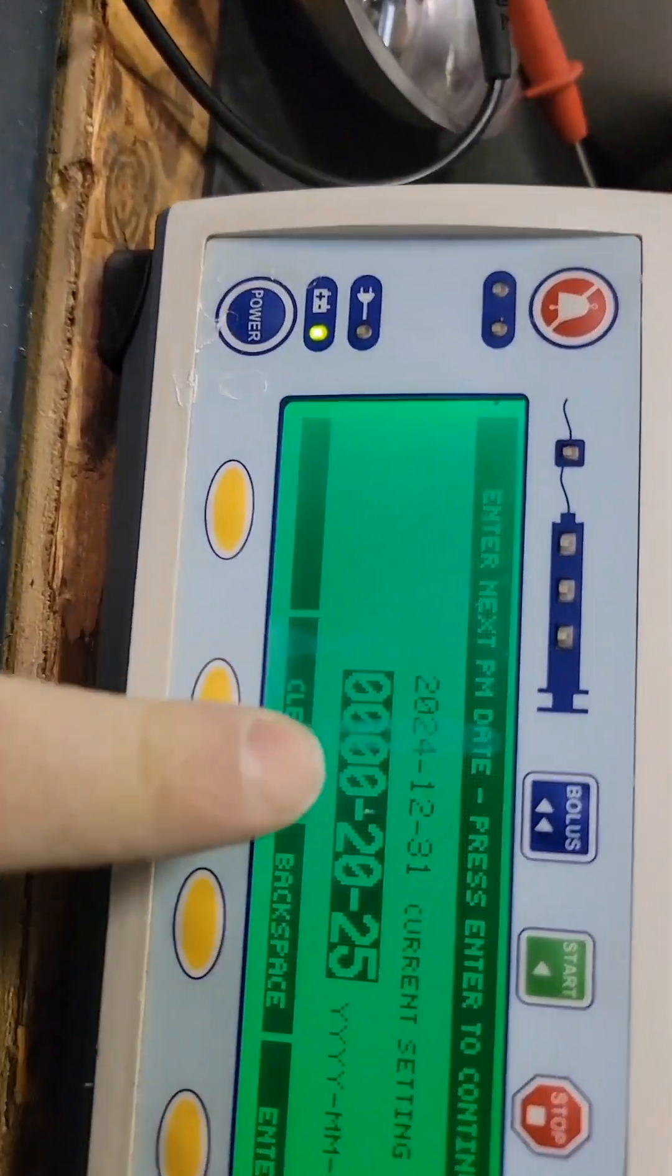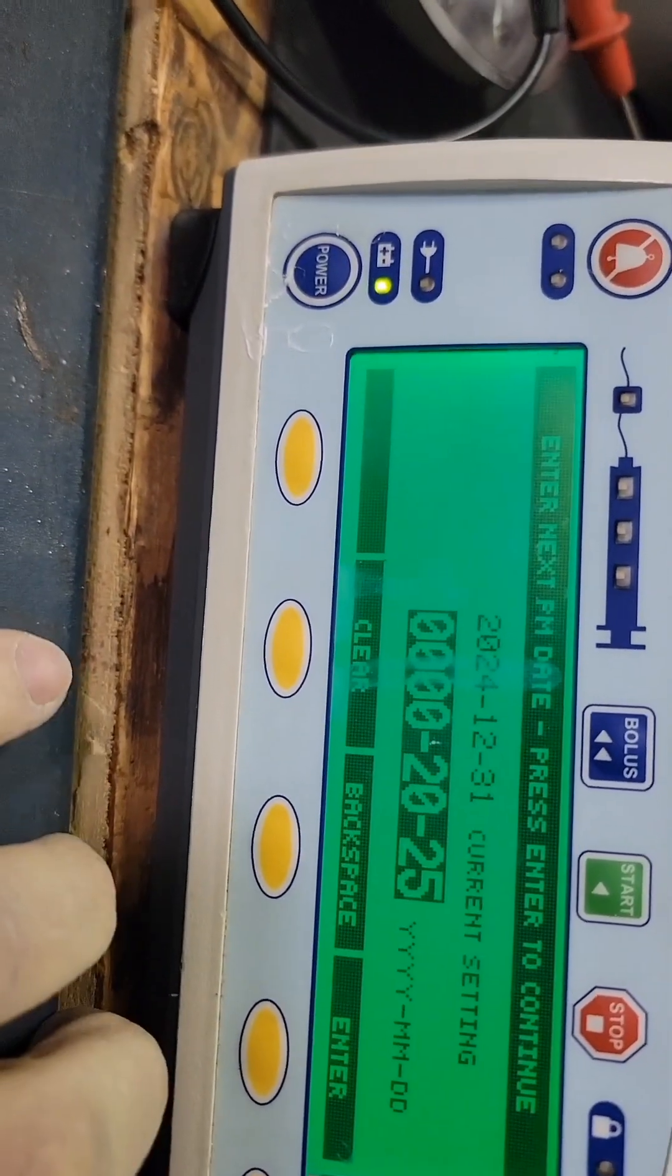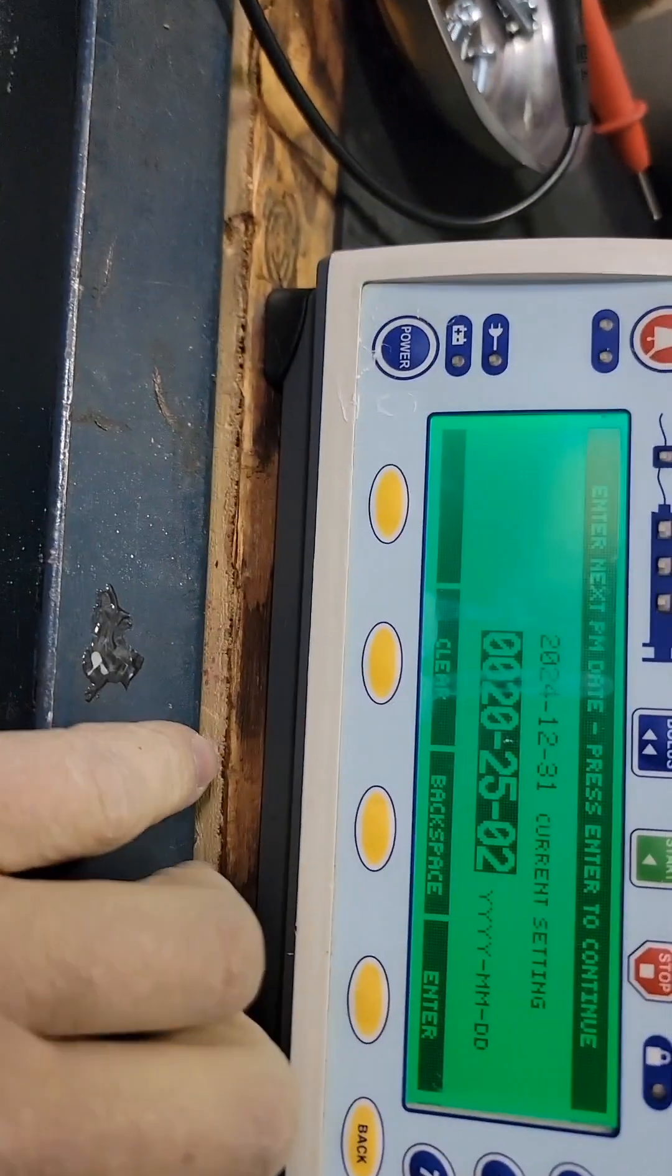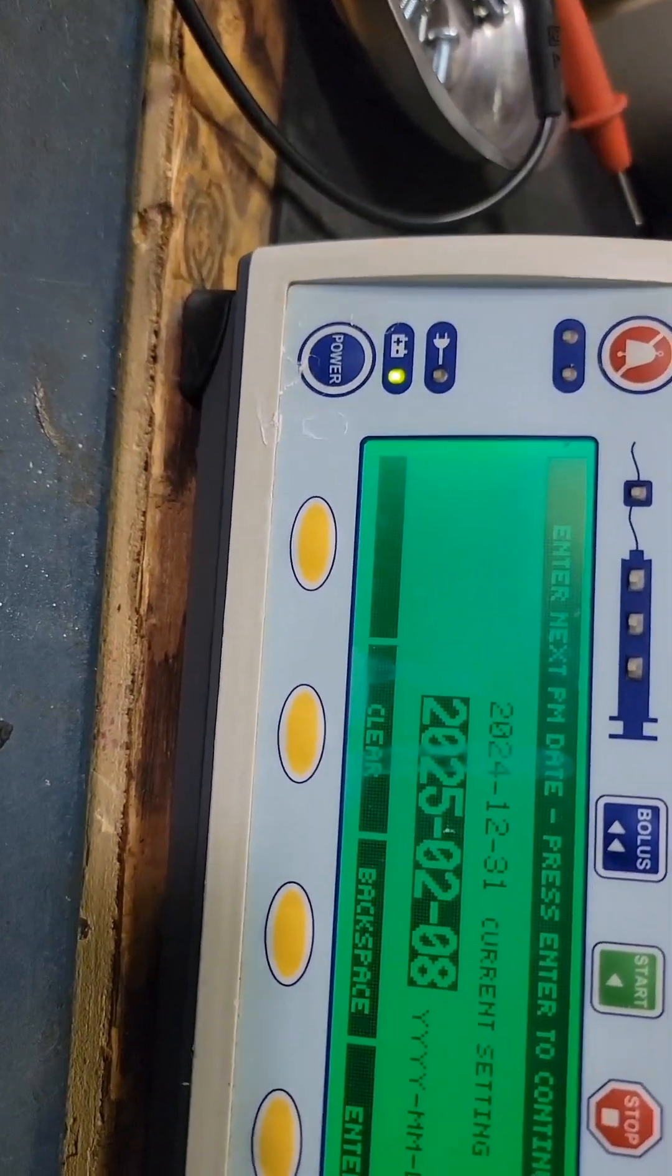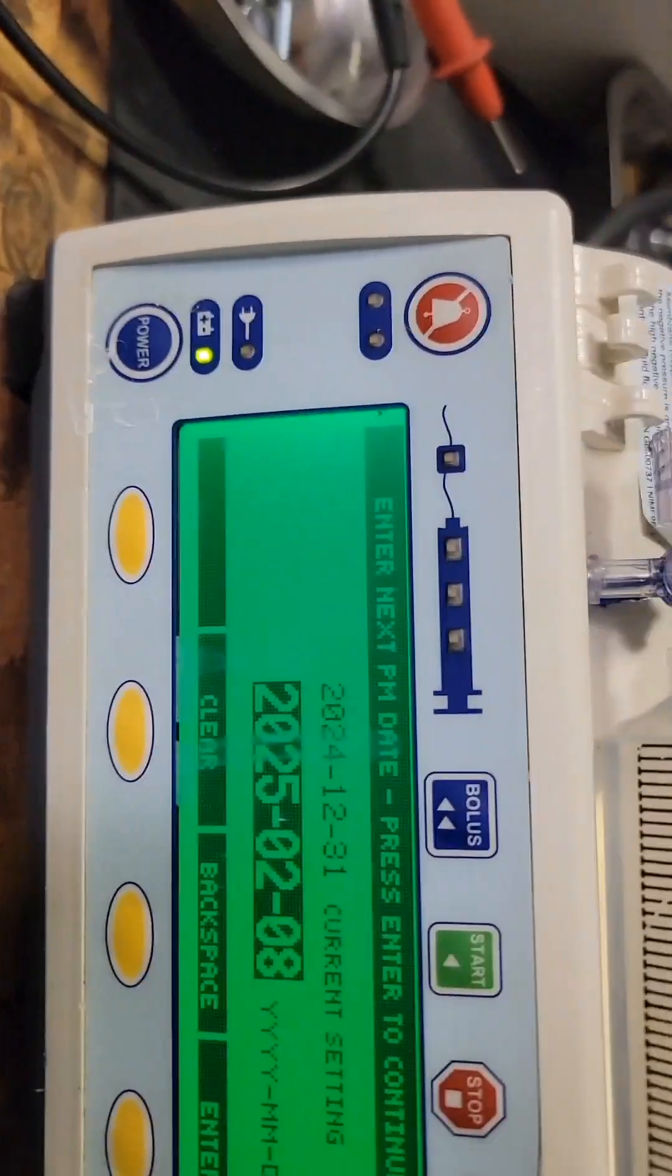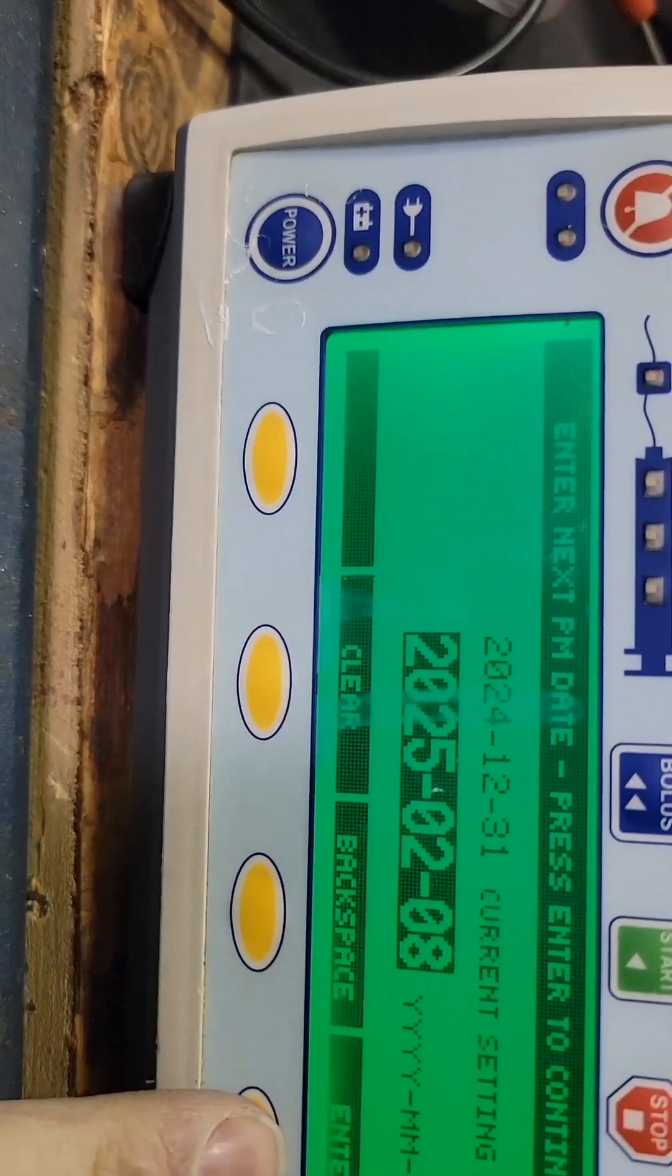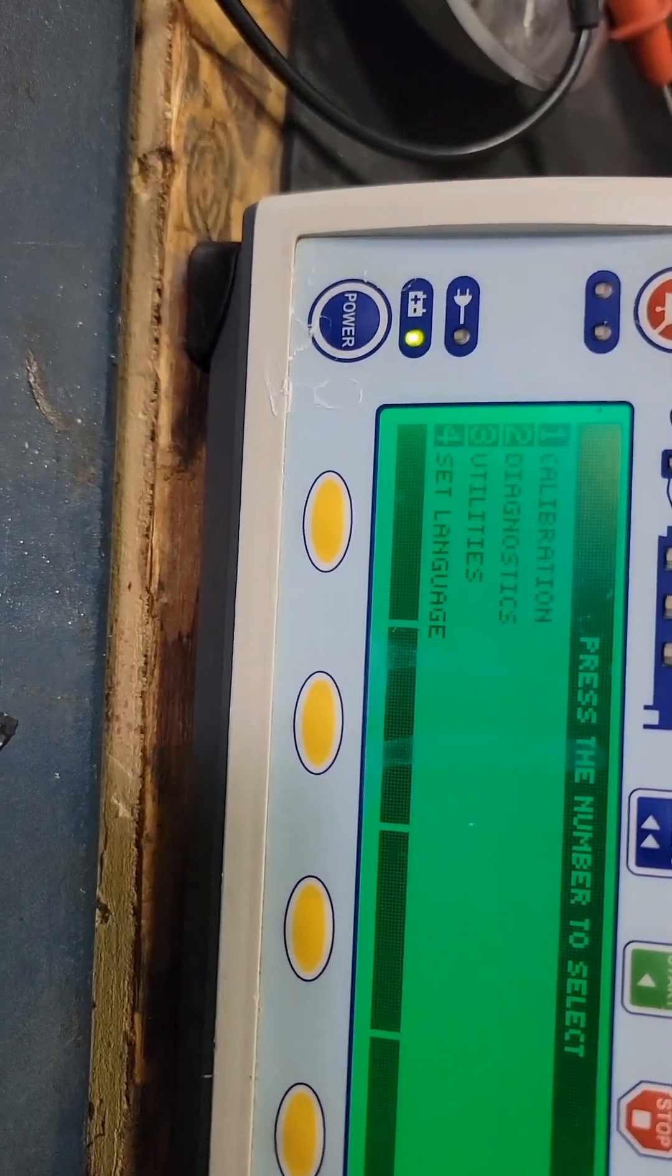Enter the date. Let's just do from today, enter the year first, so what are we at here, a month, and today is the eighth. You could generally do the end of the month whatever. That is the end.